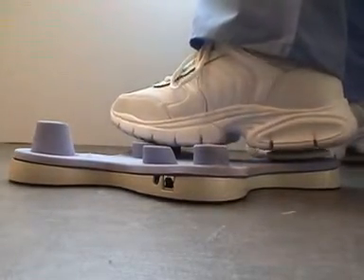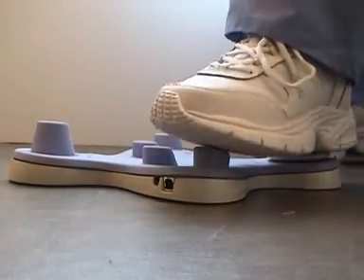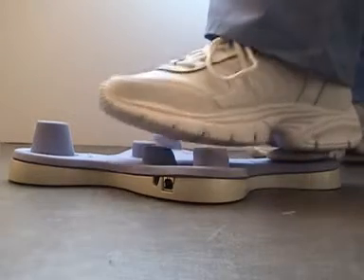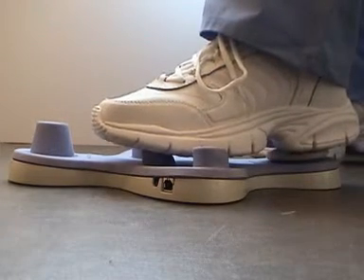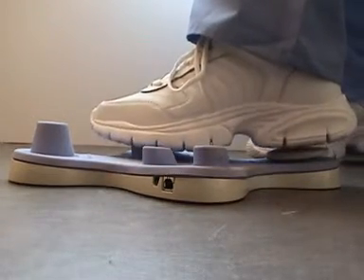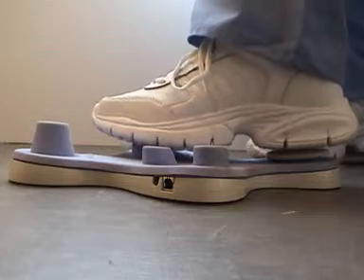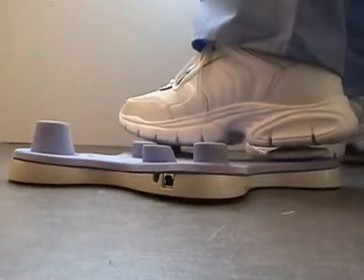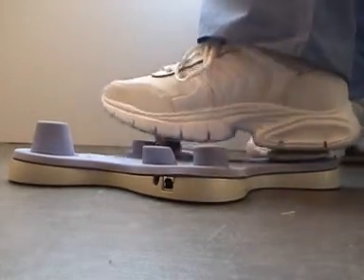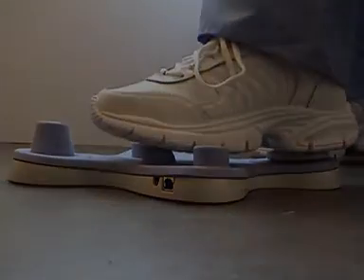To activate numbers five through eight I press and hold down for more than one second. Five, six, seven, and eight. For numbers higher than eight we'll talk about that with your software.